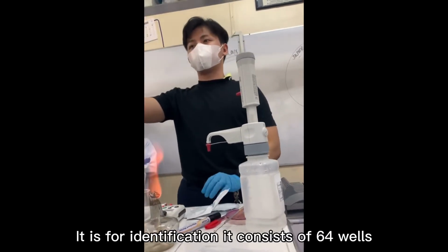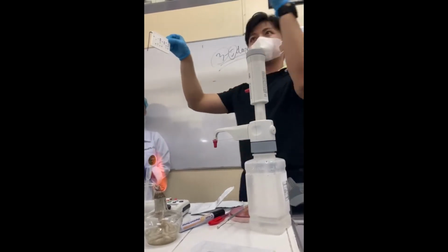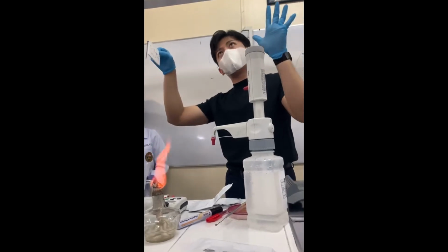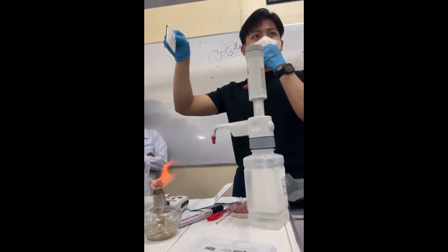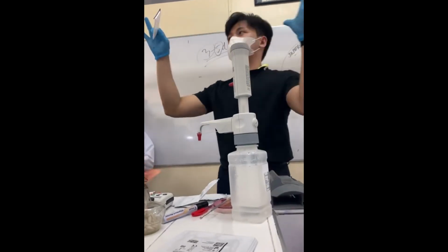It consists of 64 wells. Actually, you know the biochemical tests, coagulase, catalase, etc. and so on. In our lab, only 5 are used for gram negative, and for gram positive, only catalase and coagulase. So that's why it can differentiate or speciate bacteria, even very rare bacteria.